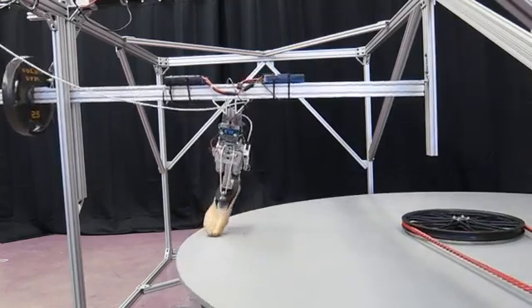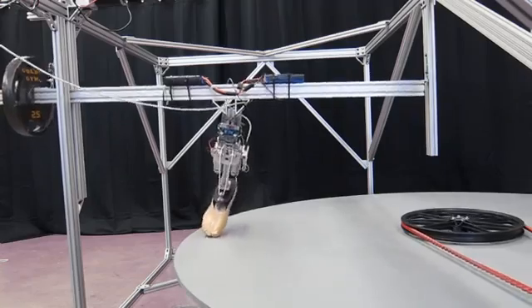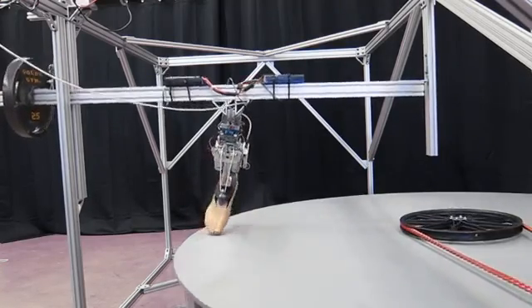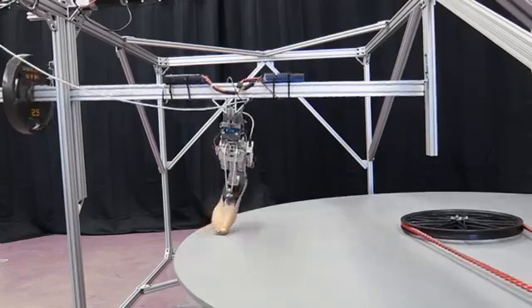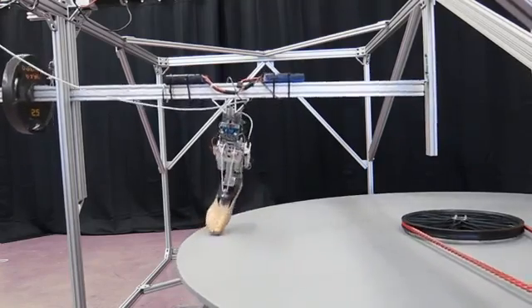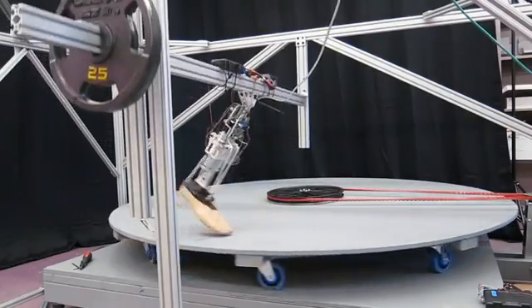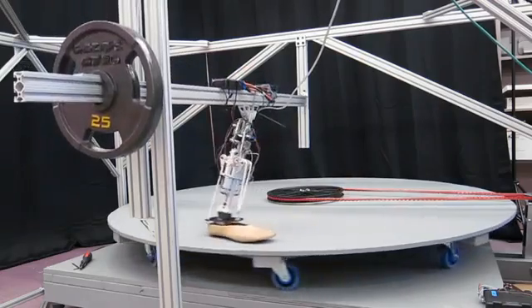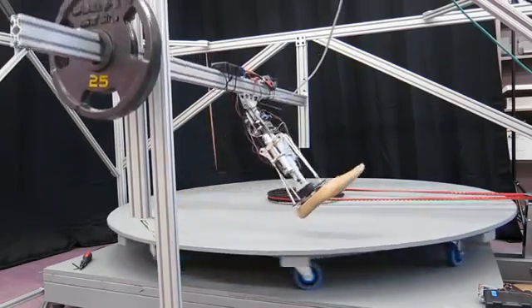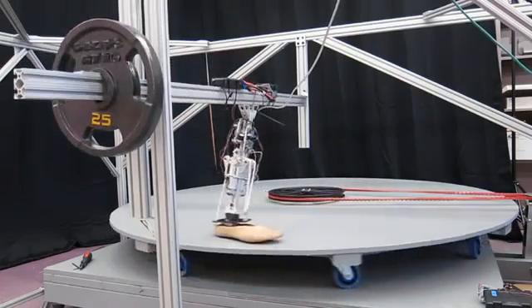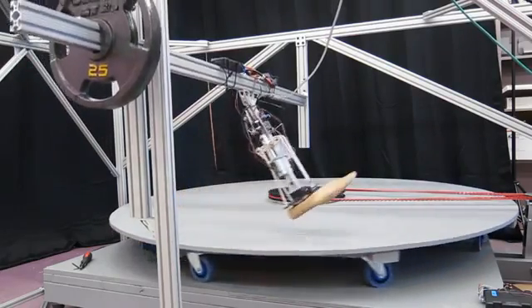Powered prosthesis should be lightweight and also be able to apply adequate amount of torques at the ankle joint. My long-term goal is to understand the varying dynamics of the human ankle during different maneuvers of gait, especially turning and changing the gait direction, and incorporate these findings in the design of a steerable ankle foot prosthesis.